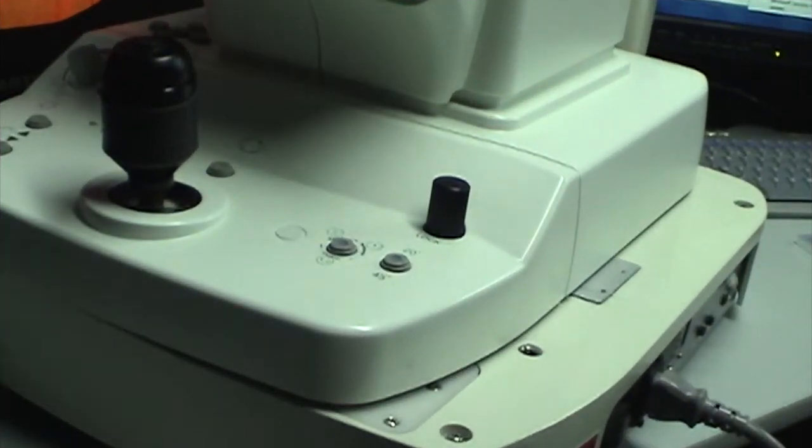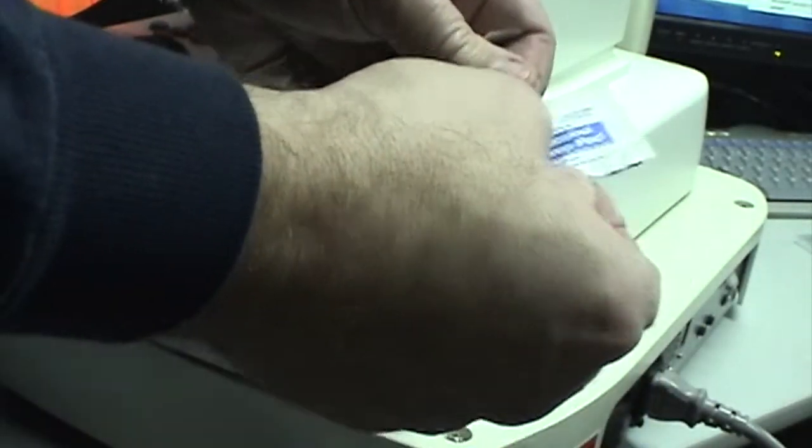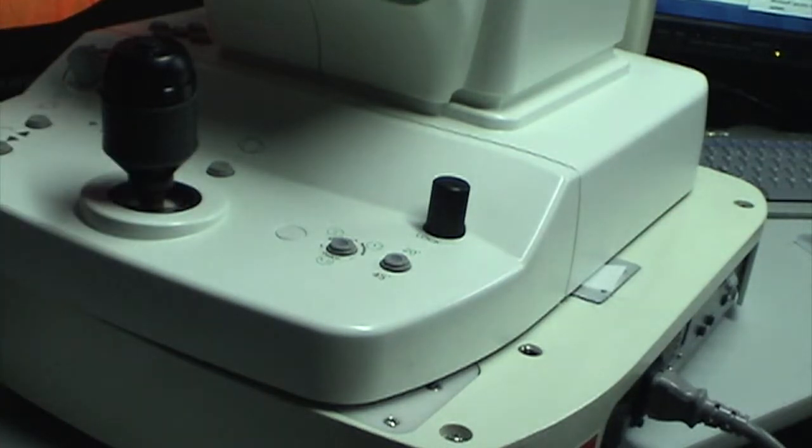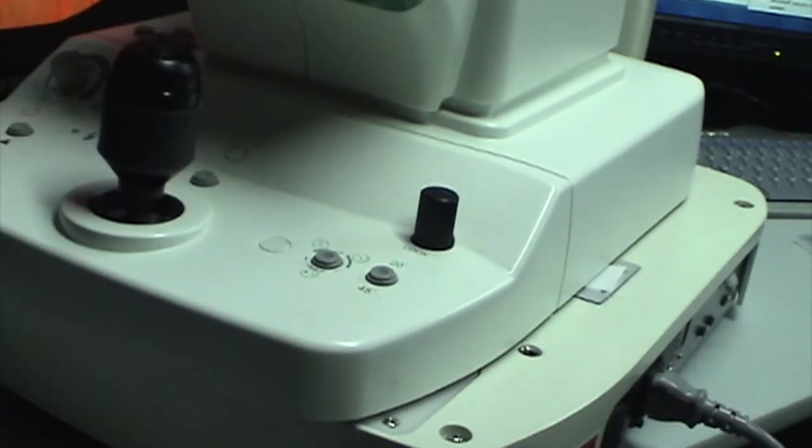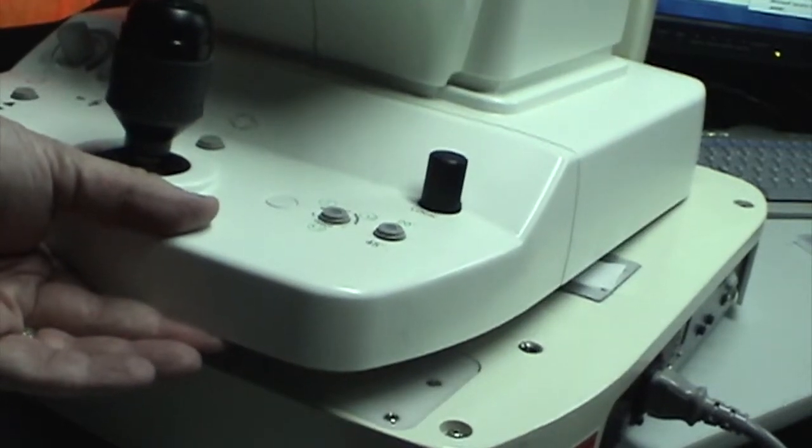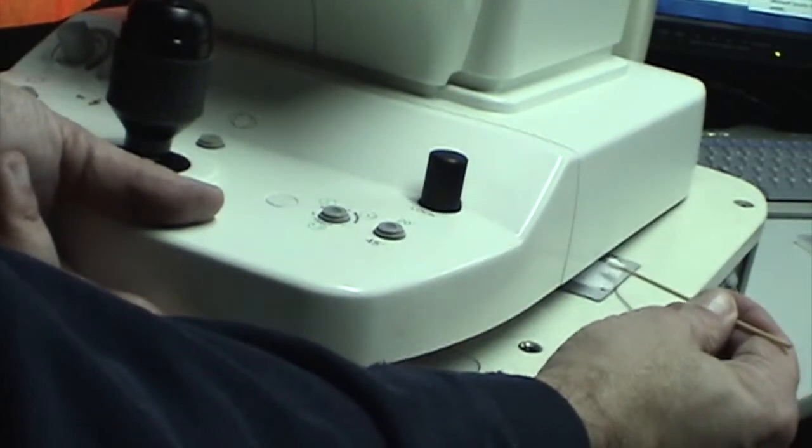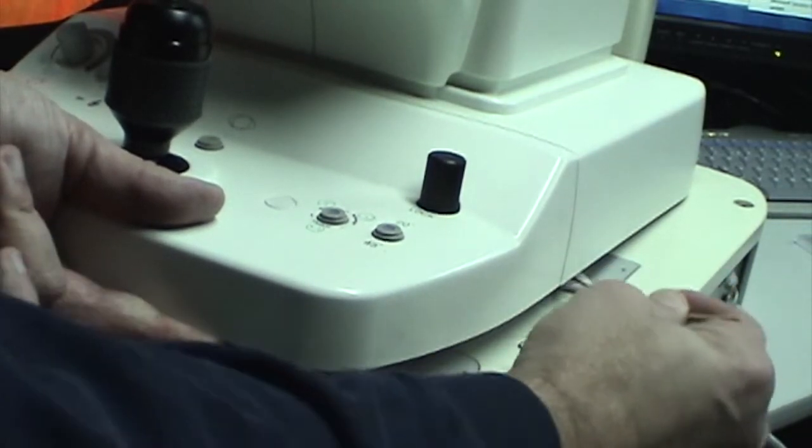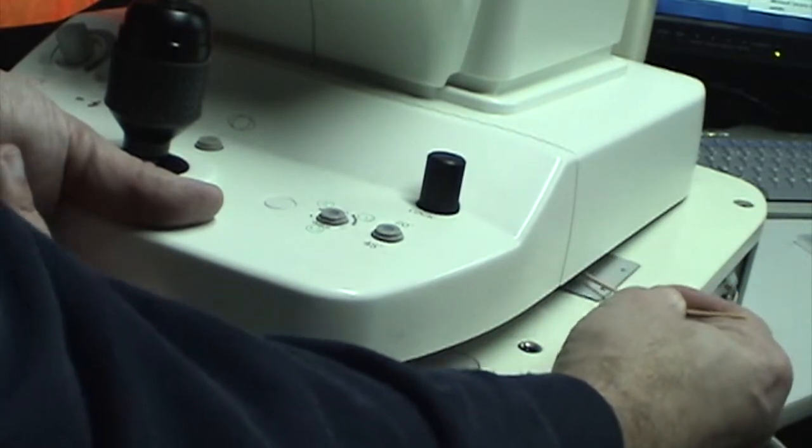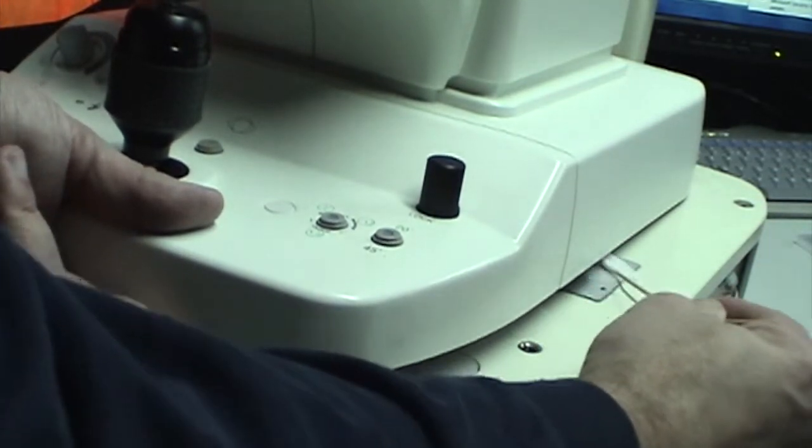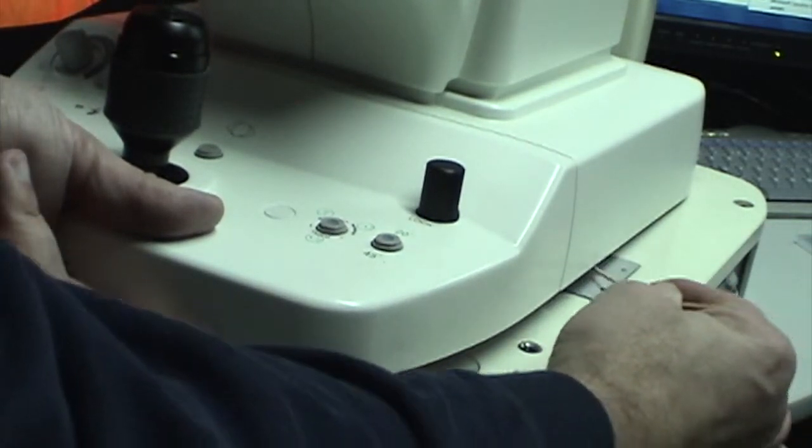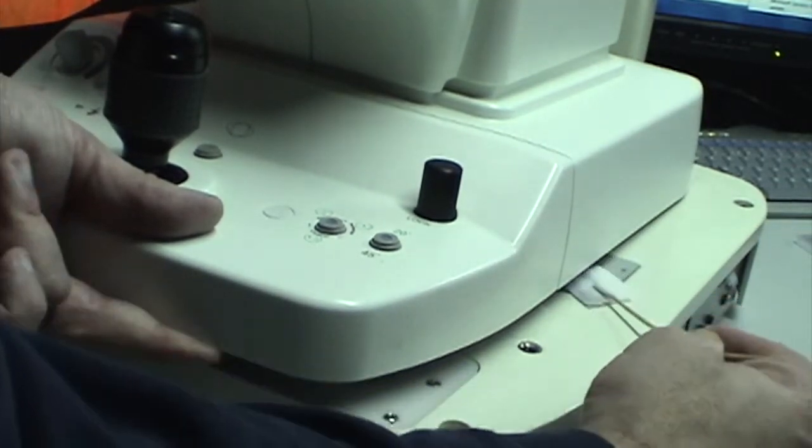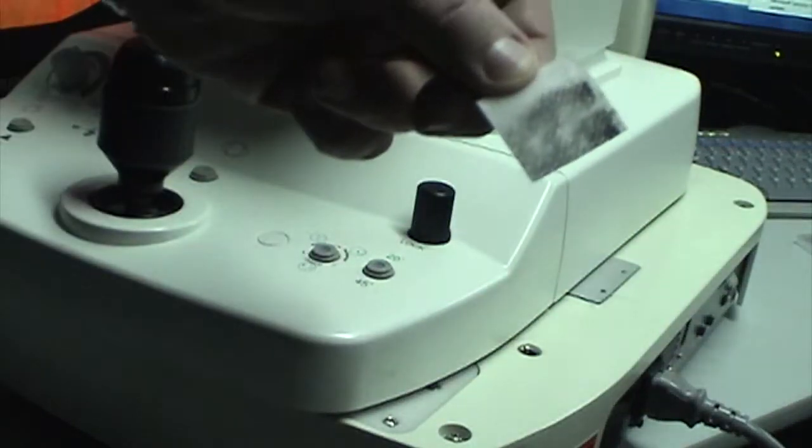What I'm going to do is take the alcohol pad, open it up, and very simply place it down on the metal plate. Now, you can't get at the entire area of that metal plate. It's about two inches square. So what you want to do is take the camera by the joystick and pull it towards you. Lift underneath to give yourself some moving space here to work. Then take the Q-tip and move the alcohol pad around. Keep in mind that this plate is square. If you feel any friction, you've gone too far. All you want to do is move the alcohol pad around until you feel you've covered the whole thing. Chances are when you're done, you're going to find out that this pad is very dirty.